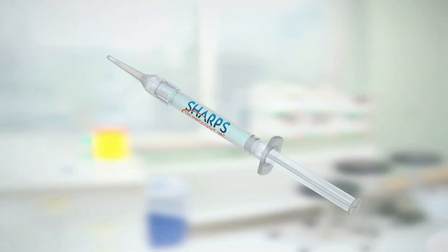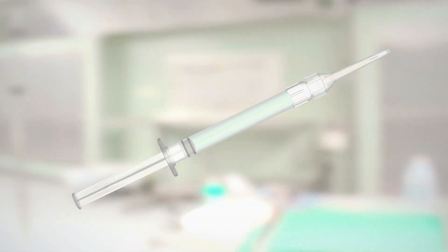This patented and FDA cleared safety syringe will begin commercialization in 2019.